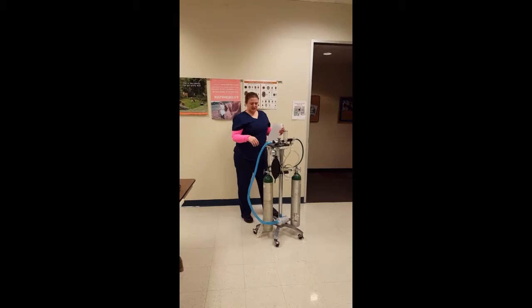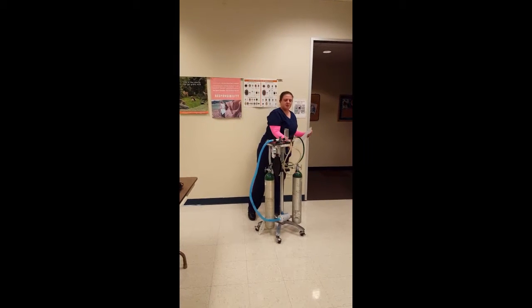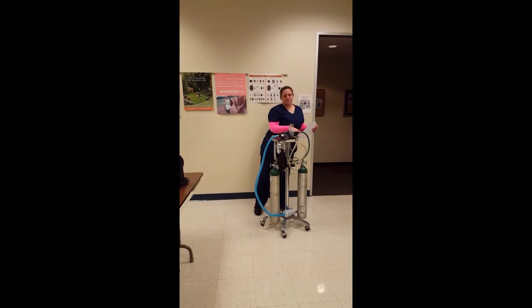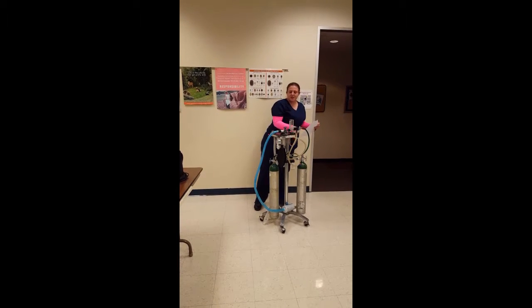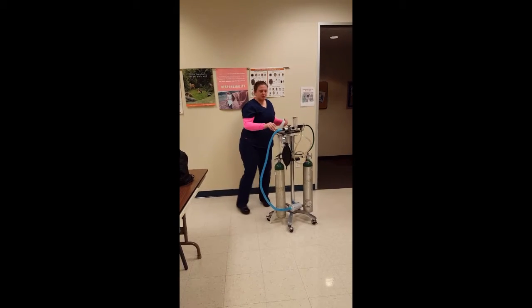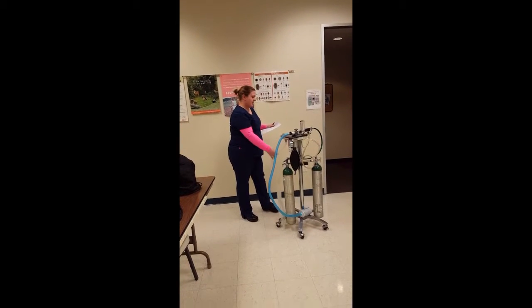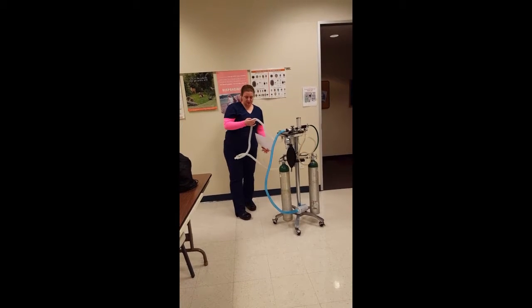It comes out through this tube, back up into the system, where if the O2 flush valve was being used to put oxygen in the system, it would come in here, and it disappears inside, and our gas is ready to go to our patient. It goes out through the inhalation valve, which is a flutter valve and unidirectional, through the inhalation tube to the endotracheal tube, into and out of the patient.